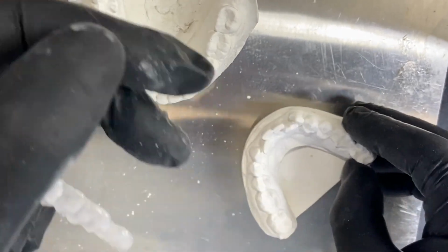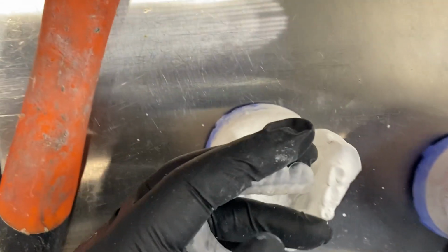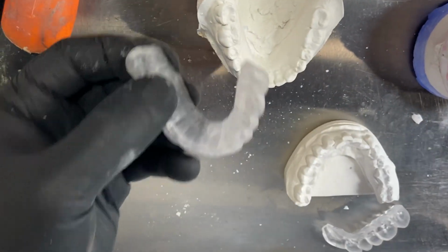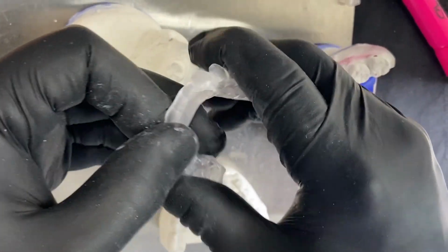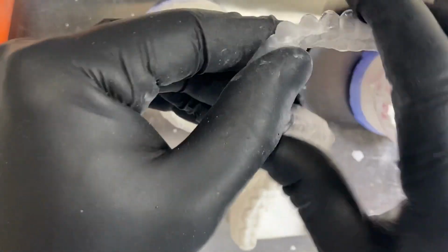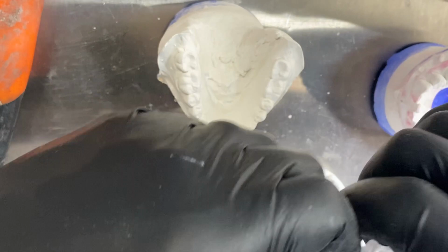Also remember that we have cases with divergency in the walls of the case that we will need to block out more aggressively to allow the path of insertion. So remember, technology gives us products. We need to be able to prescribe what we need. Here are the two definitions: a nylon material that technically can be hammered and still try to keep its integrity, versus a PMMA material that is so hard, amazing, but it can break in pieces just because it doesn't have that flexibility.